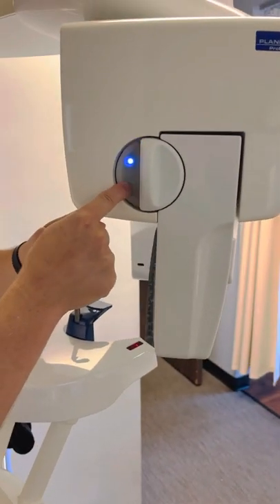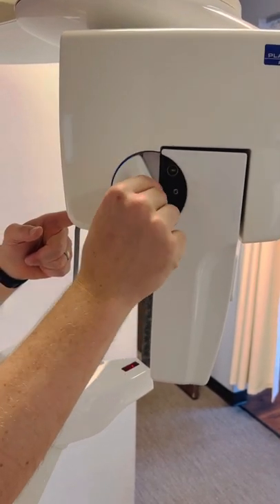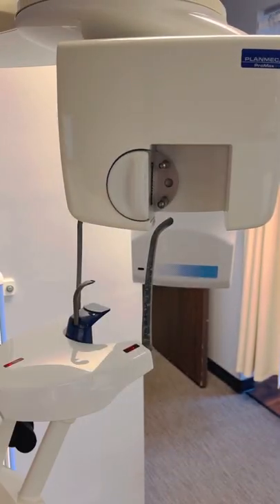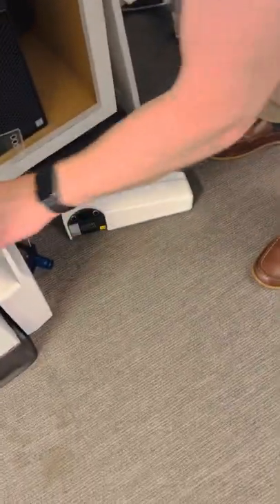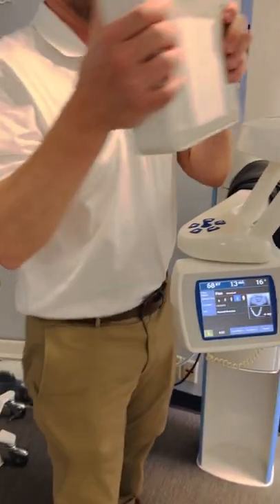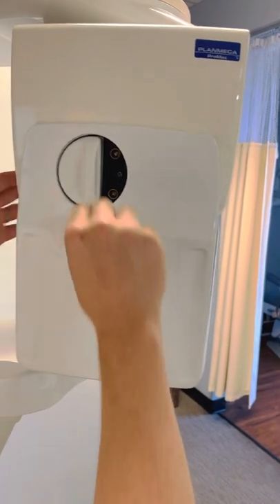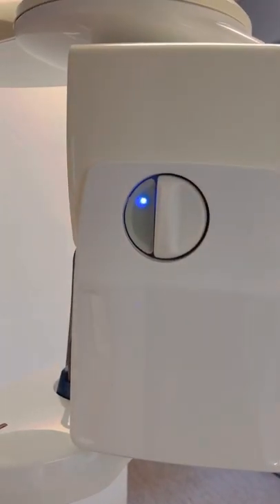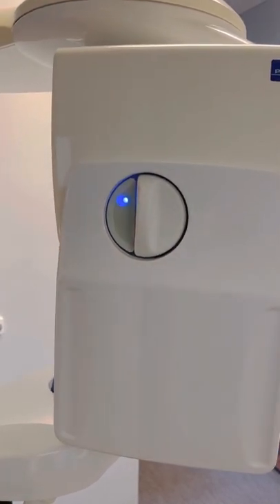It looks like a cam, so push that in — this white knob sticks out here, then you twist this dial. That lets you slide the sensor out. So that's the 3D sensor. Take the pano sensor off and put the 3D sensor on — machines nowadays, this sensor does everything. Twist this, push the white knob all the way back in, and the blue light lights up, making a connection between the machine contact points and the sensor contacts.